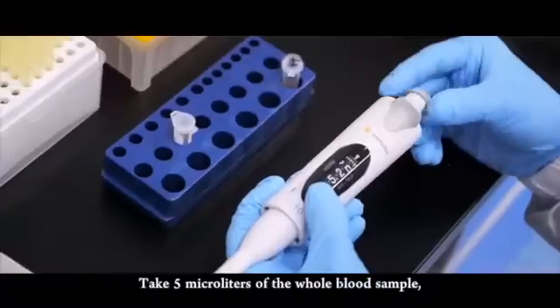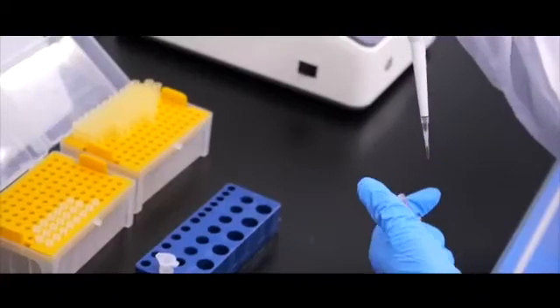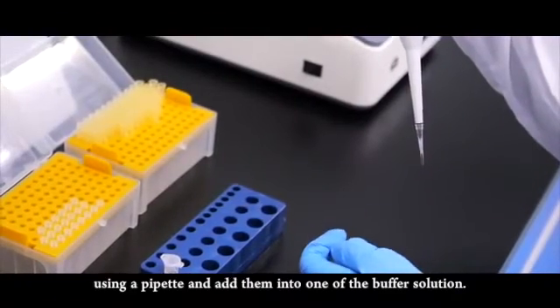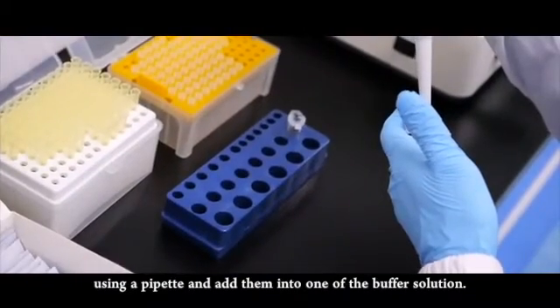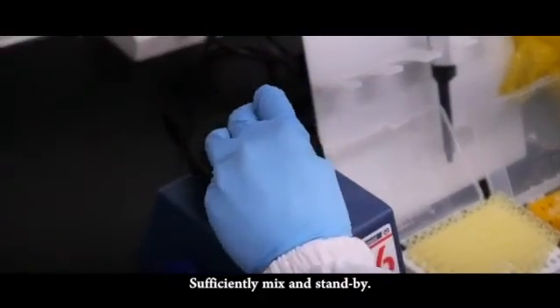Take 5 microliters of the whole blood sample using a pipette and add them into one of the buffer solution. Sufficiently mix and stand by.